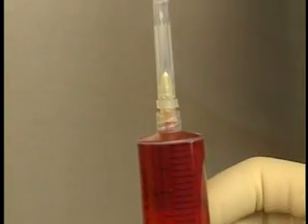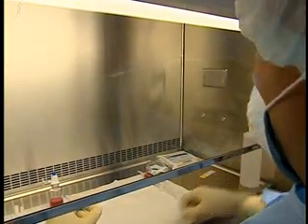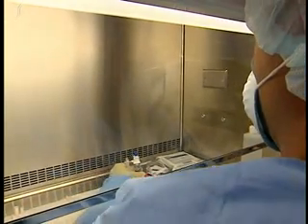If the amount of fluid in the syringe is insufficient, withdraw the missing volume. If you have withdrawn too much fluid, the surplus must be injected back into the original vial.